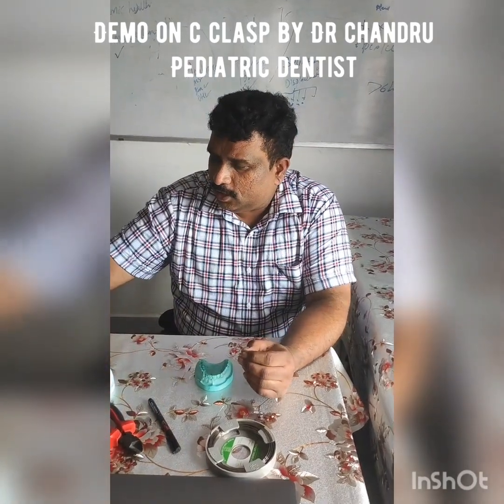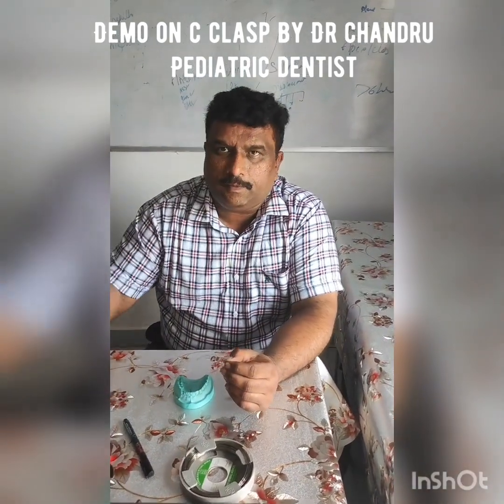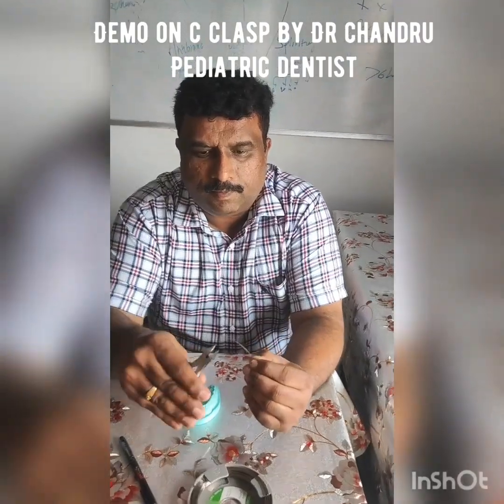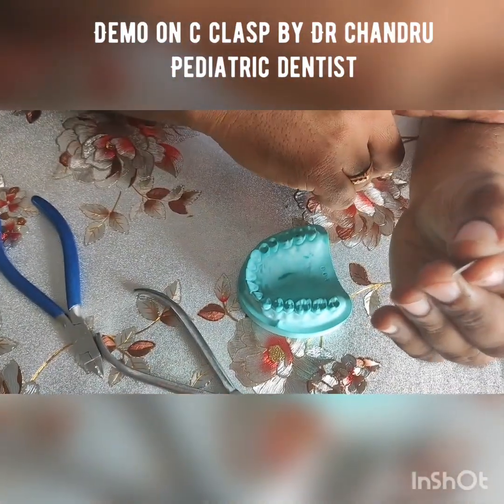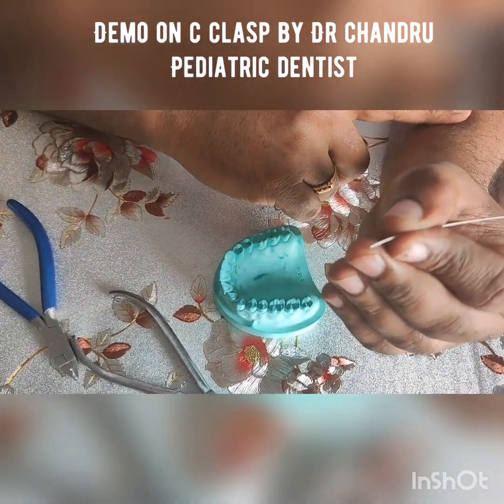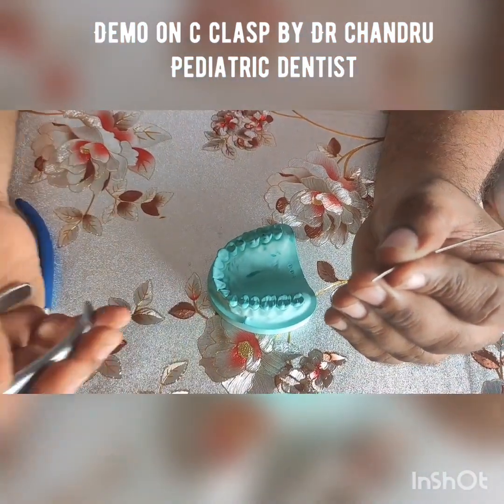and roughly straighten the wire using Adam's plier. Once the rough straightening has been done, take a universal plier.